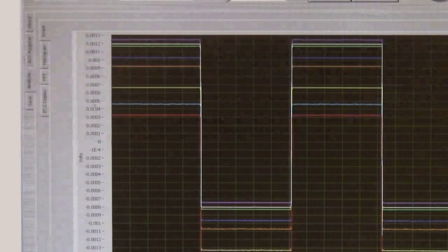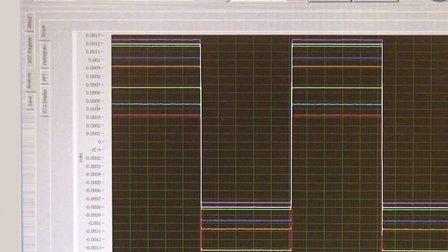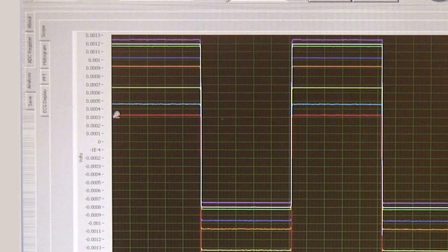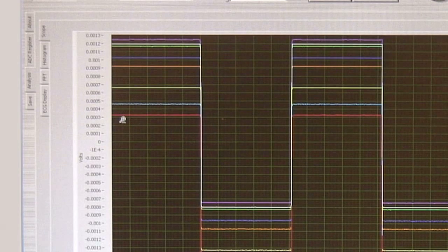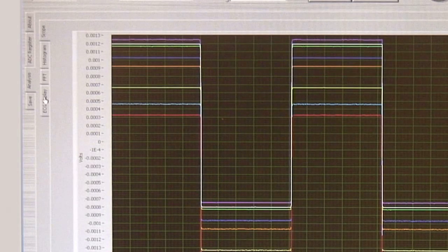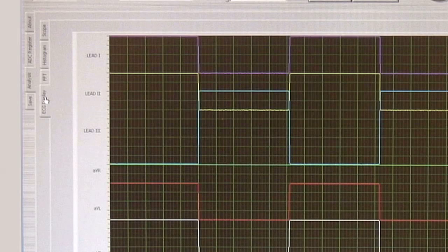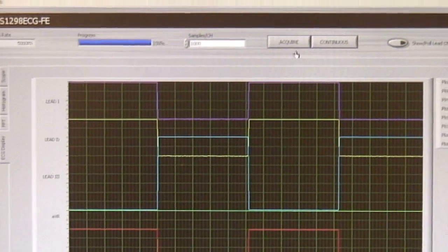The analysis tab in the software interface has an option for ECG display. Switch to this view to have the individual ECG labels for the different leads. Now click acquire to get data from the ECG simulator.